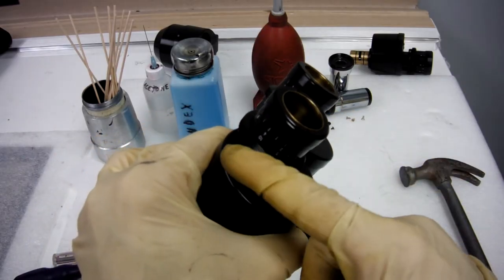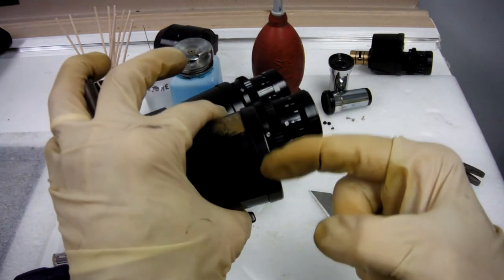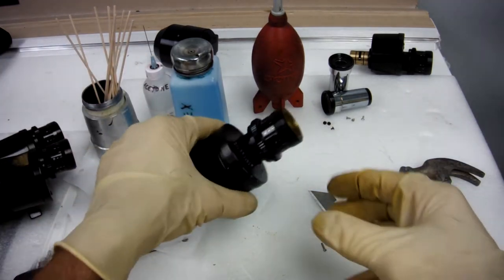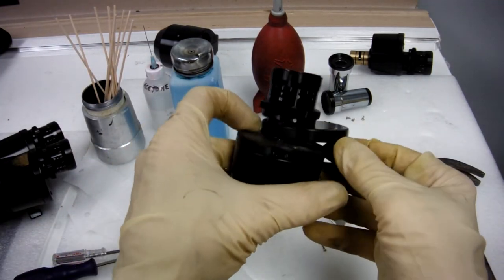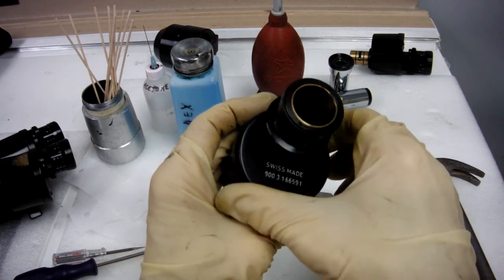So after you take off the cover screws, there's three screws around here. Take off these three cover screws.